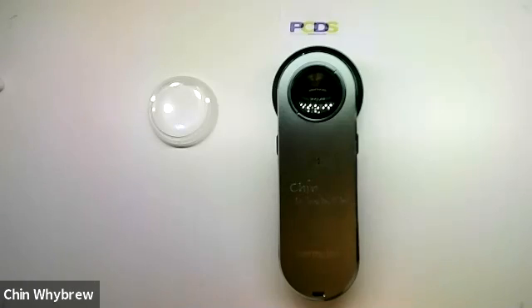Hello everybody, this is the DermLight DL3 Dermatoscope. Today I'm just showing you the equipment. If you want to learn how to use it and interpret what you see, then please do come along to one of our Dermoscopy for Absolute Beginners courses.